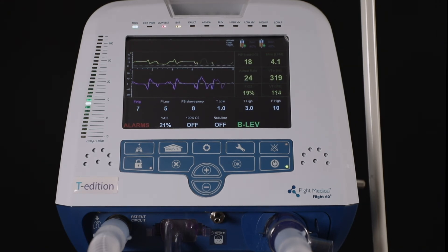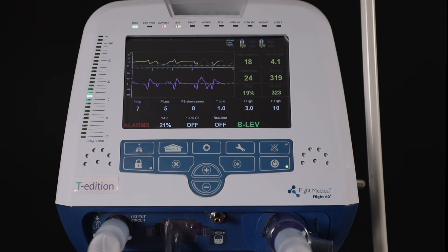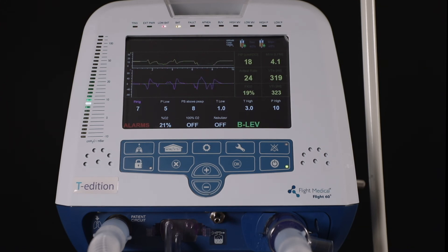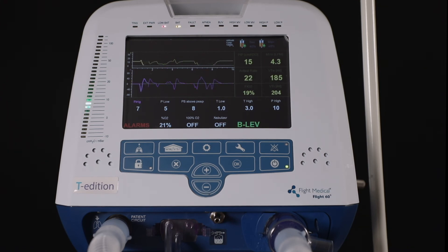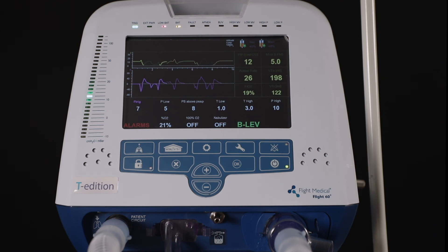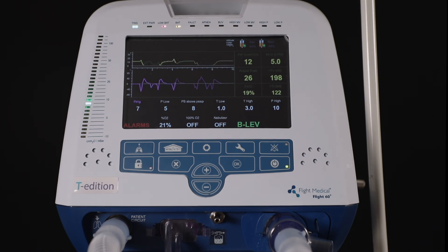When the patient triggers a pressure support breath during the pressure-low period, the transition from pressure-low to pressure-high occurs one second from the end of inspiration.